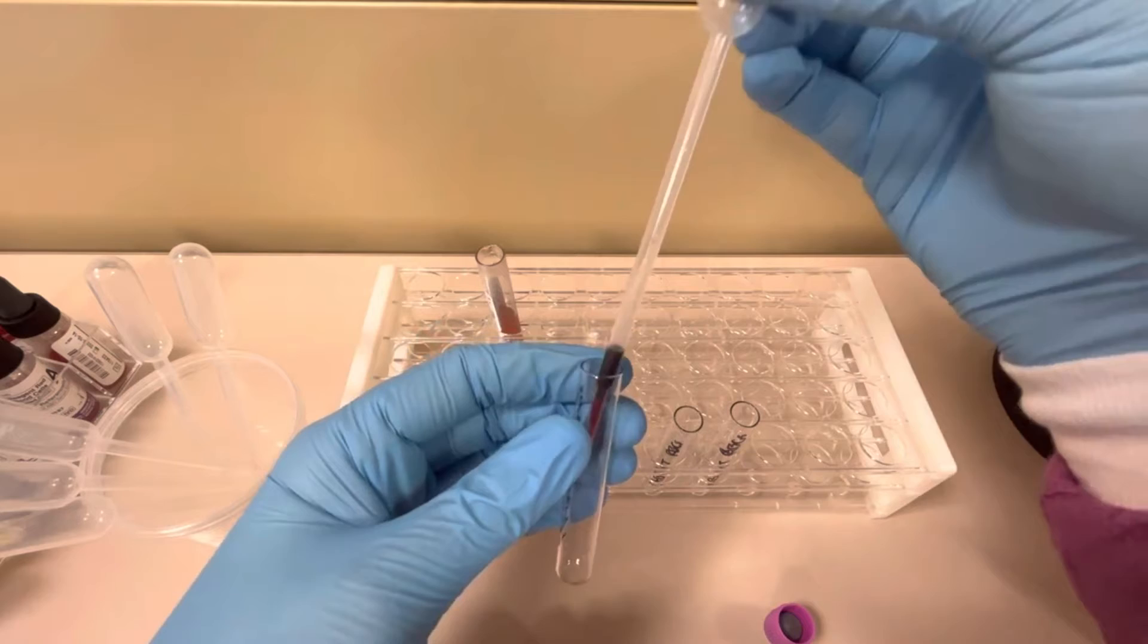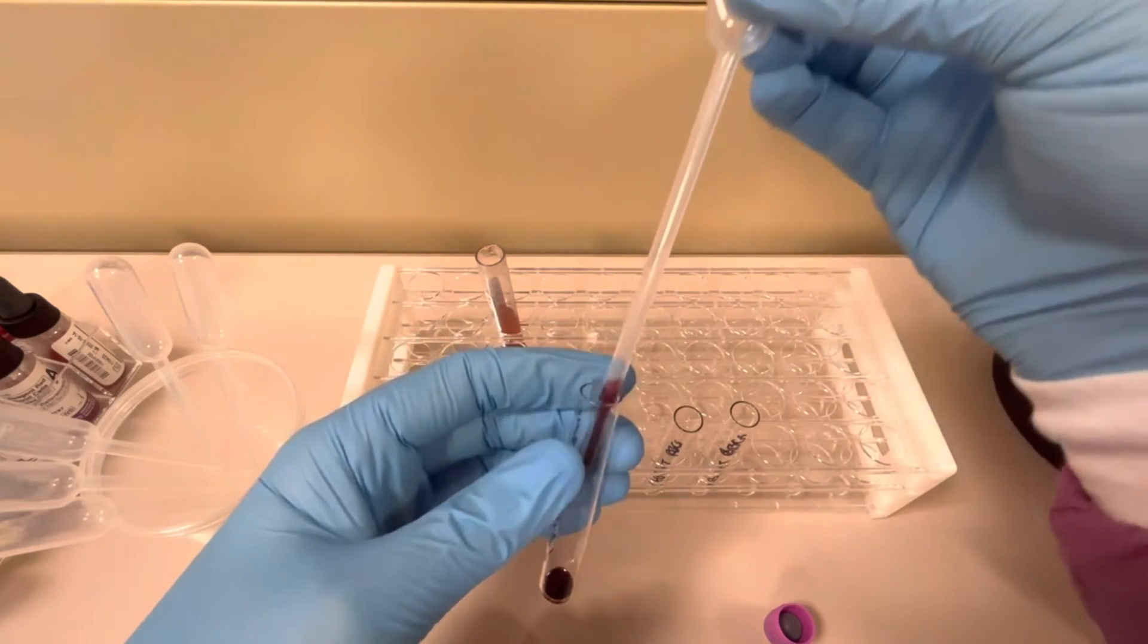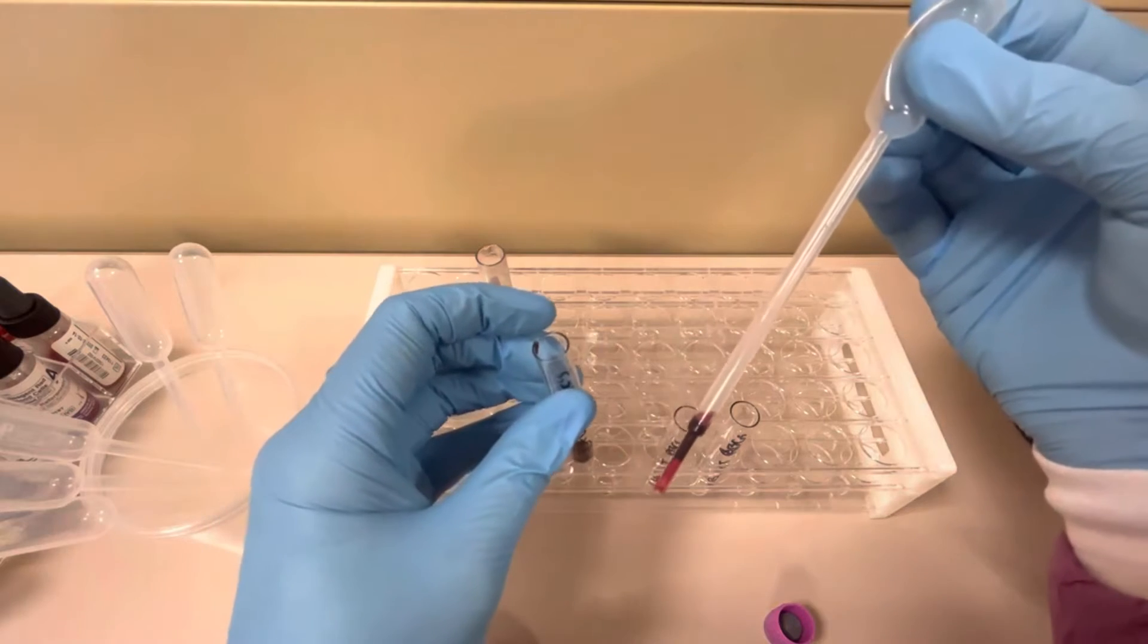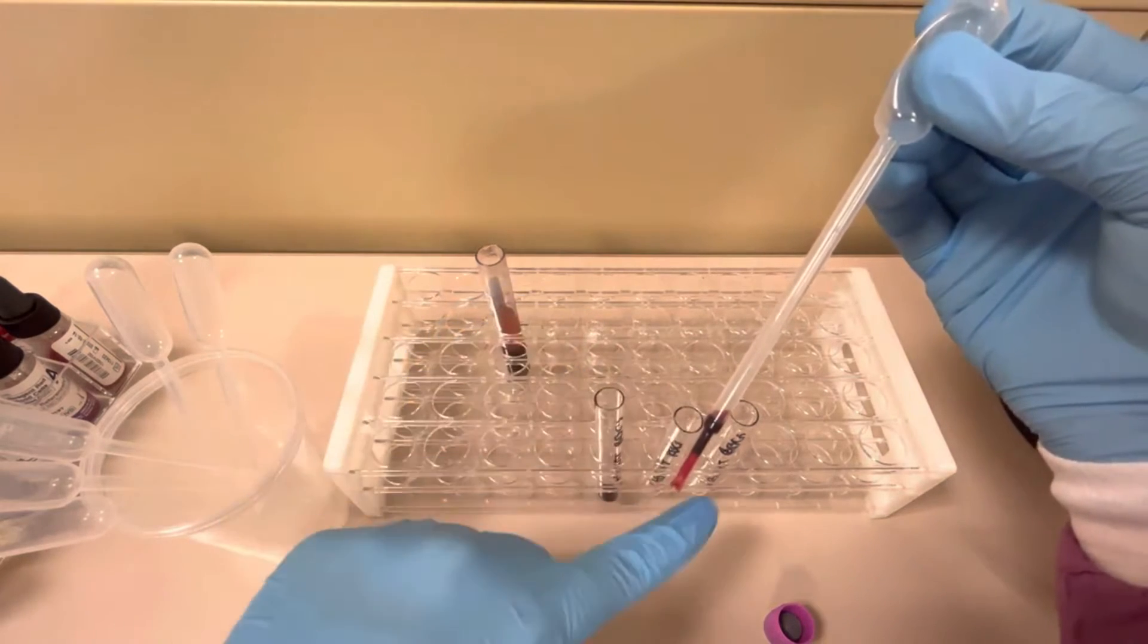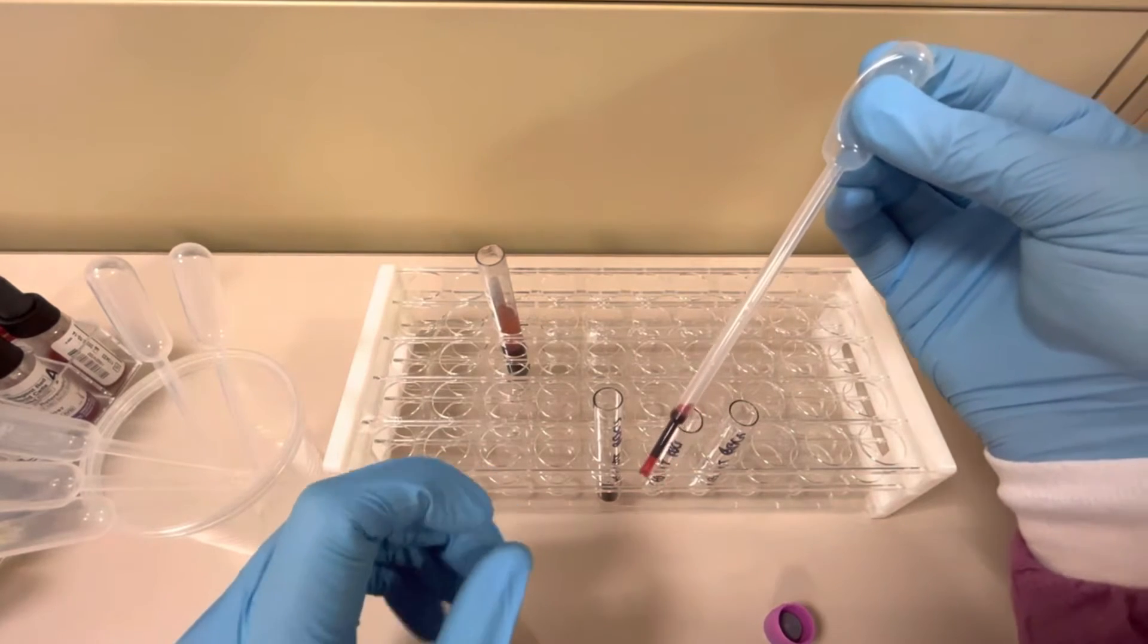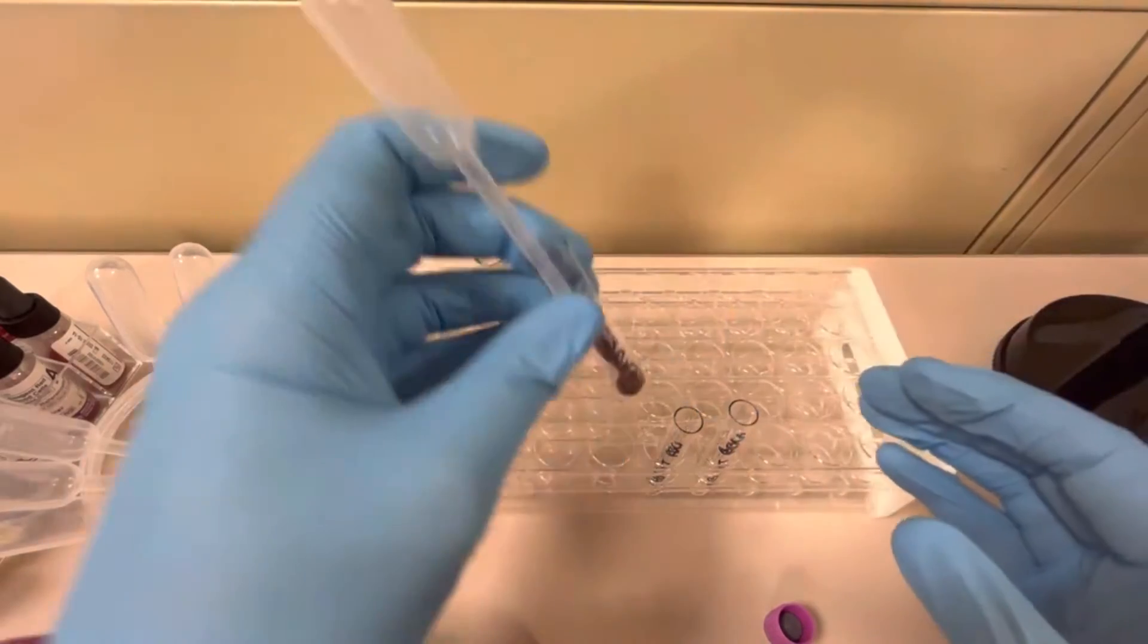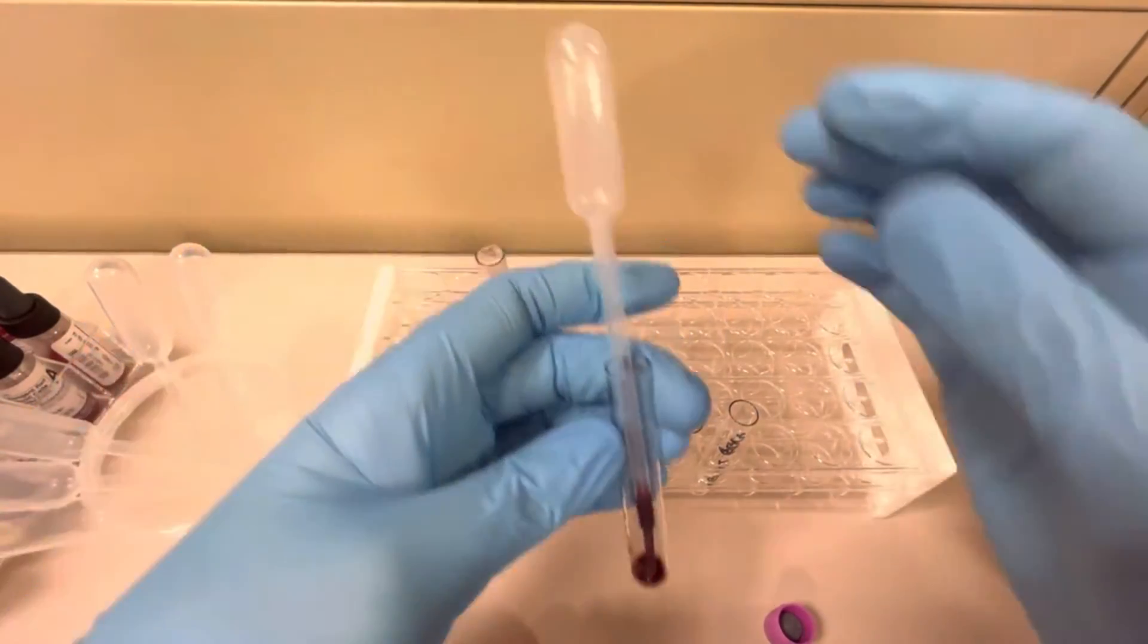So this first one here, this is the correct way to do it. I just put a drop or two in there. So what I'll do here is create them incorrectly, but I'm not going to show you how to do that because that's not the proper way.